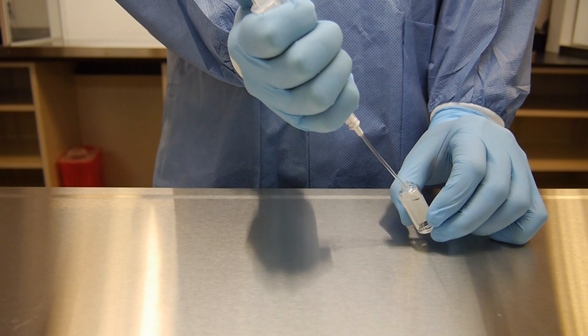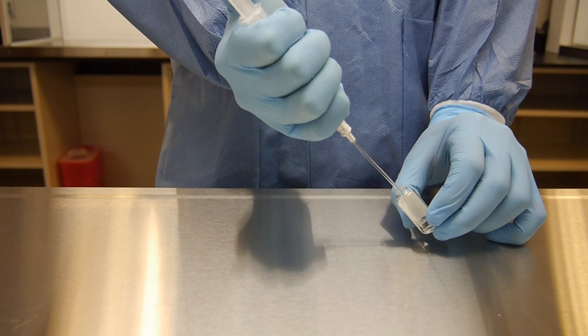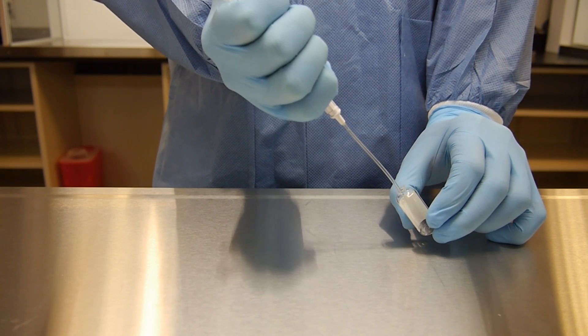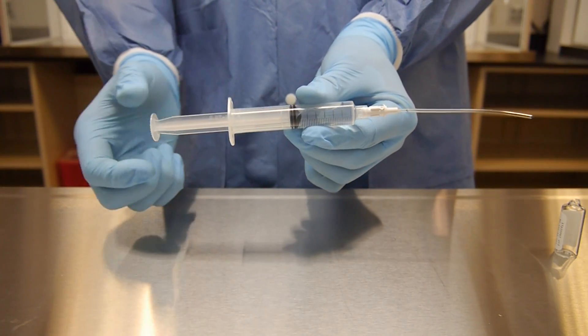Withdraw the fluid from the ampule. Once all the fluid is removed, draw back the syringe plunger to ensure that all fluid has passed through the filter.